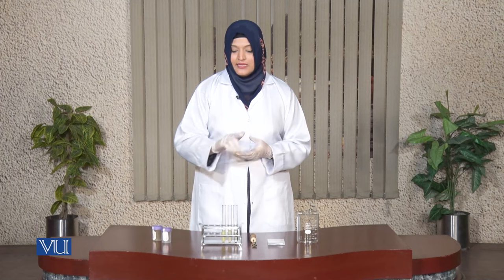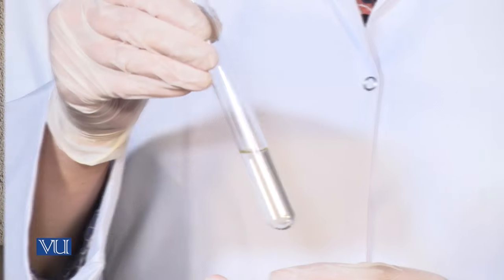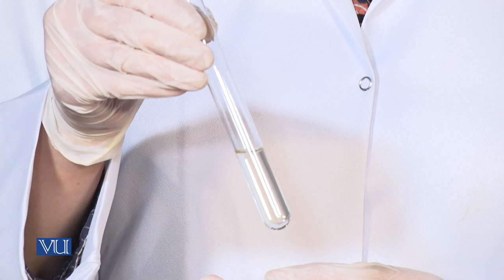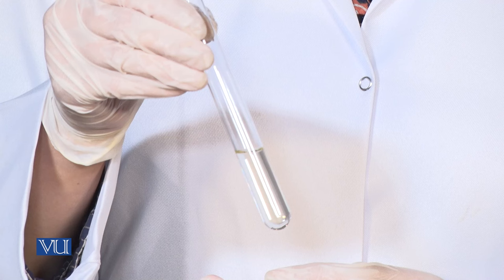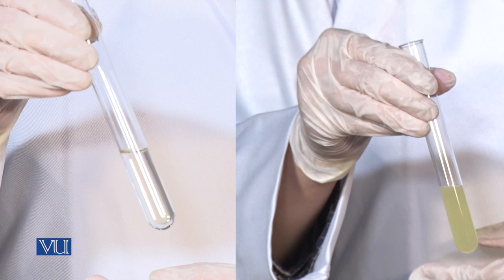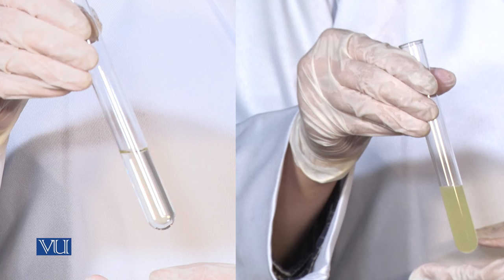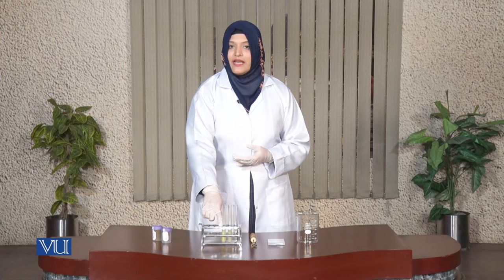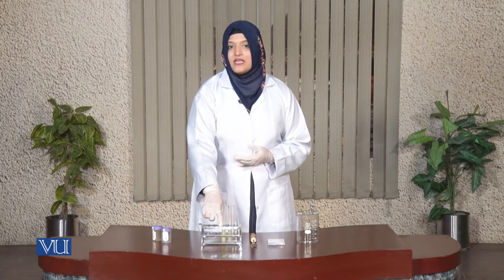If the first morning void is collected properly, the urine sample usually looks like a clear sample, as shown in the first tube. If you observe the urine sample is as cloudy as the last tube, it means the patient has a urinary tract infection and it should be treated accordingly.